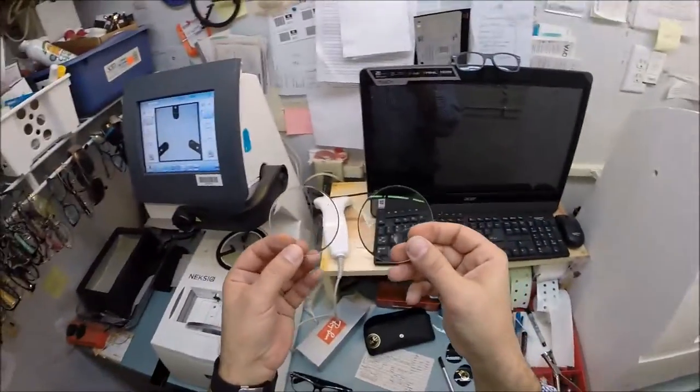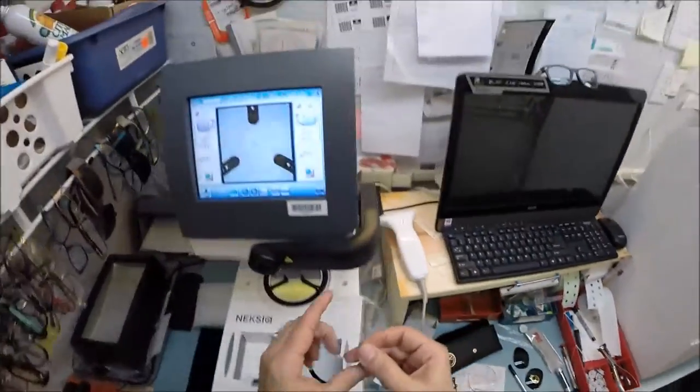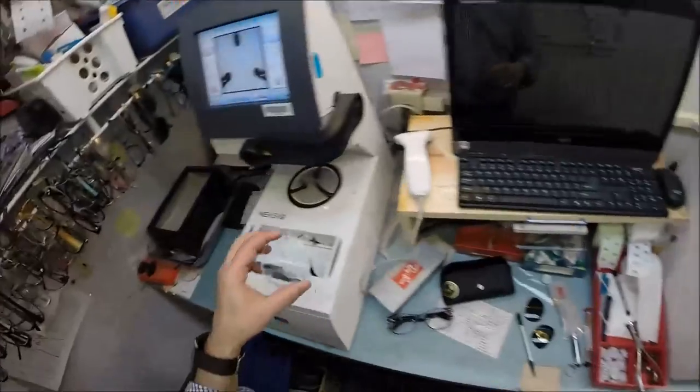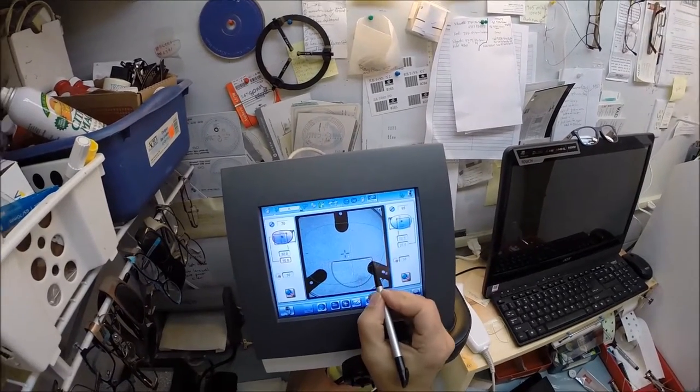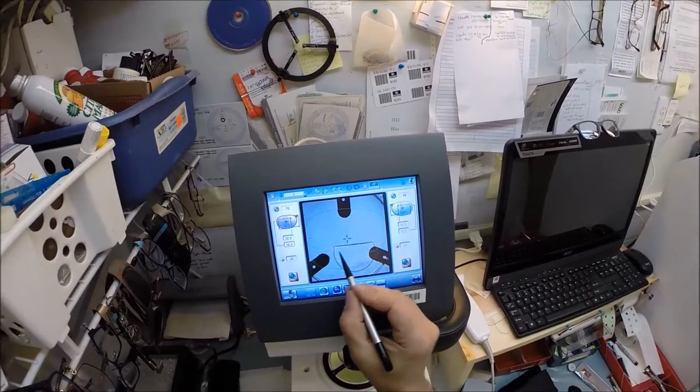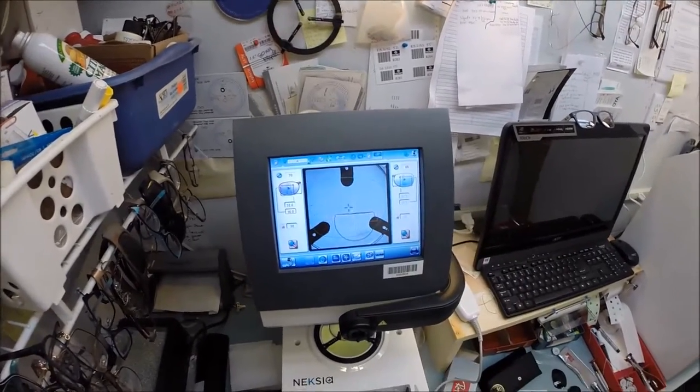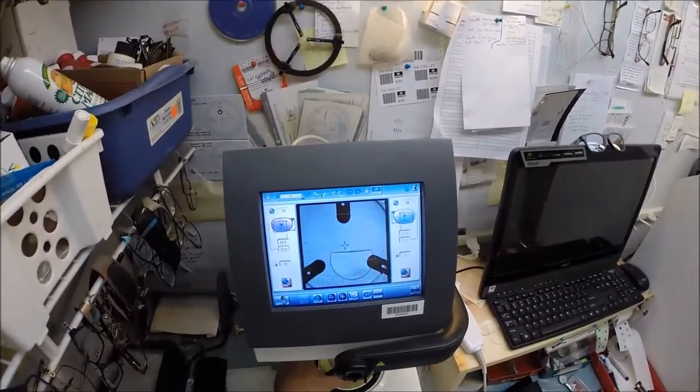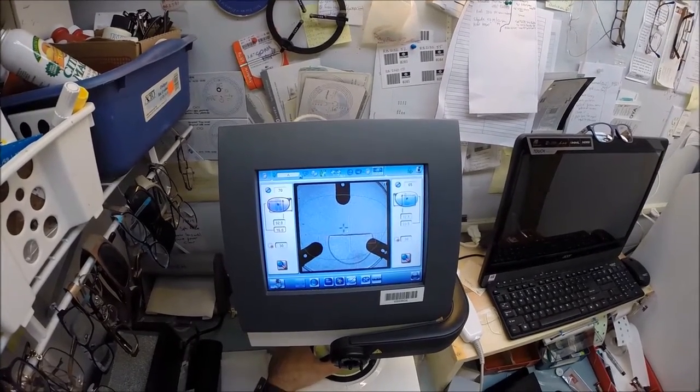These are your lenses. Before I get going I need to cut them down to fit in here. I'm gonna use my forty thousand dollar pocket knife this time. I'm gonna put your lens in there. You can see your bifocal segment in there. I'm gonna get it oriented between these two lines. This is a treat for Reed - I don't think he's seen me cut one of these before, but I have it marked up within that grid.